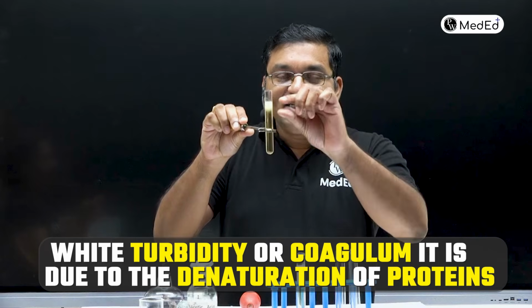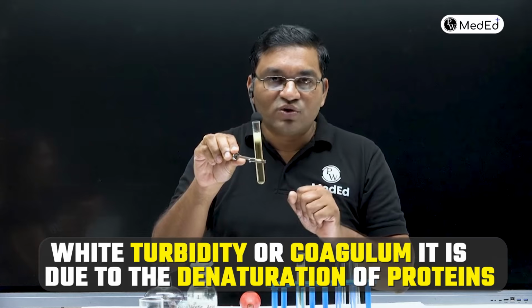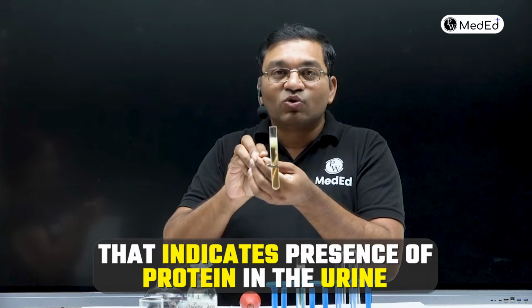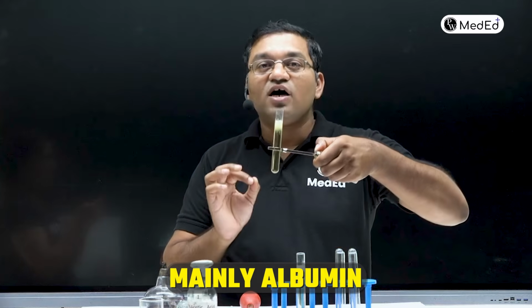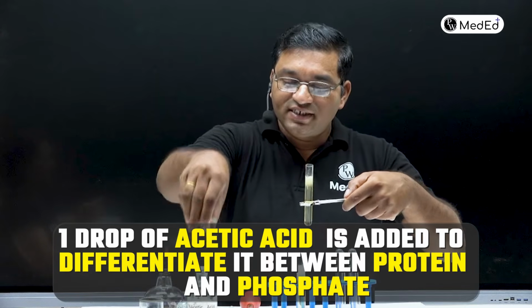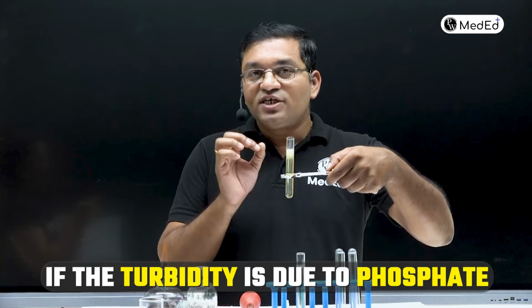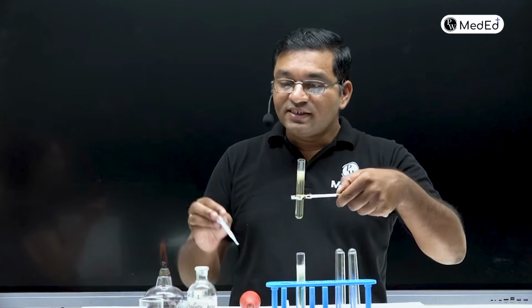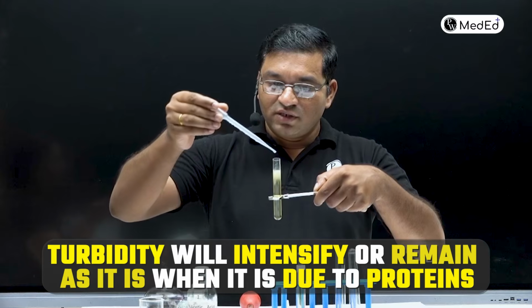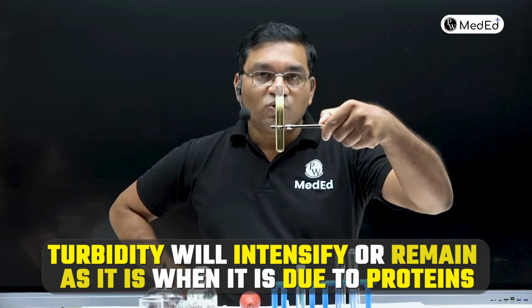Got it? So white turbidity or coagulum is due to the denaturation of proteins. That indicates positive heat coagulation test, that indicates presence of protein in the urine, mainly the albumin. Now 1 drop of acetic acid is added to differentiate between protein and phosphate. If the turbidity is due to phosphate, it disappears when we add the 1 drop of acetic acid, and turbidity will intensify or remain as it is when it is due to proteins.